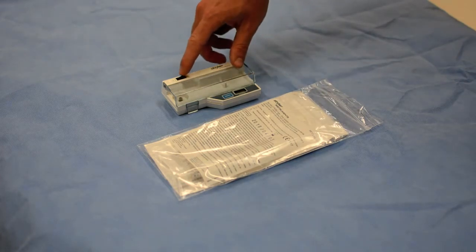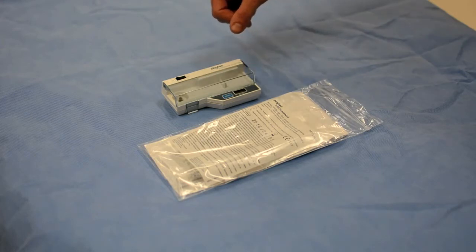You can verify that it has proper battery power by turning on and checking that the monitor does show some readings.